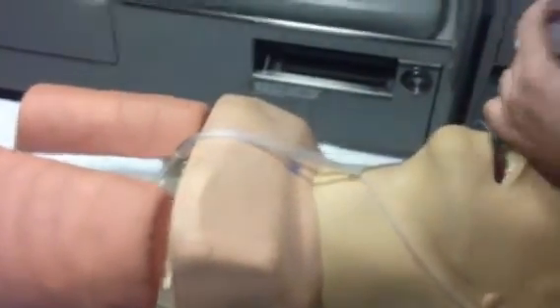This saves at least a minute of switching out from bougie to ET tube and not having to look for your bougie. Give it a practice — see what you can do.